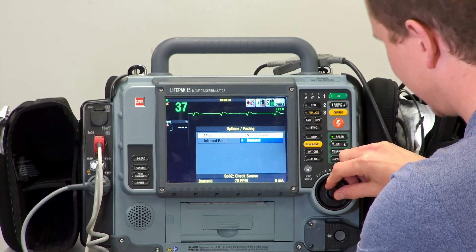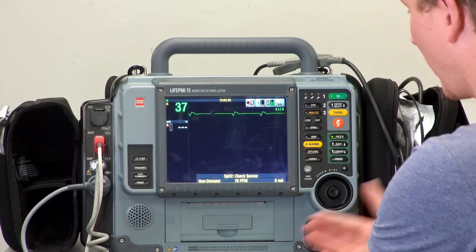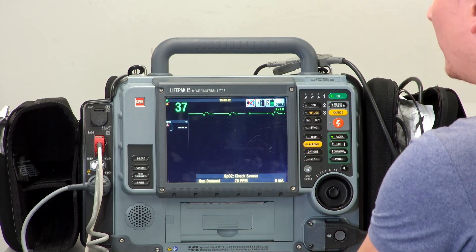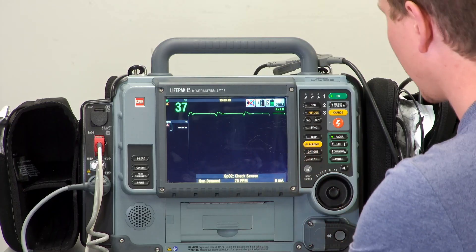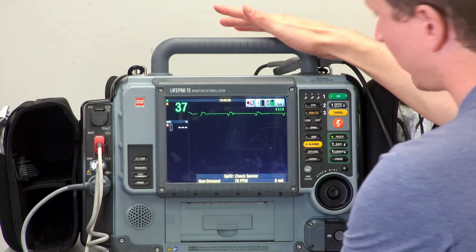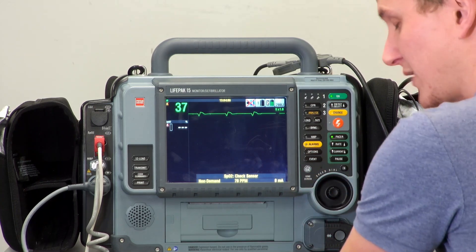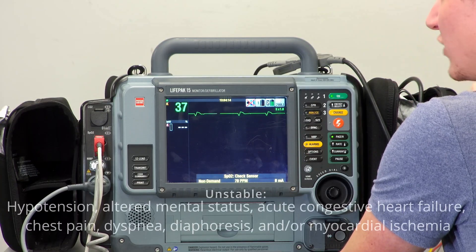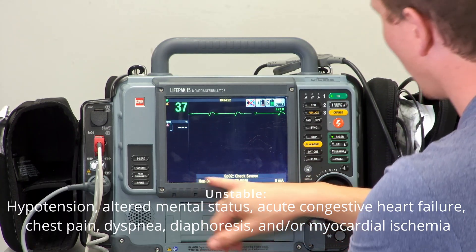Demand mode means that if we set the rate to 70 and the patient's intrinsic heart rate goes above 70, the machine will turn off. To change this, go to options, then pacing, and switch from demand to non-demand. In non-demand mode, the machine will continue to pace at 70 regardless of the patient's own heart rate. If you are in a moving vehicle, fixed-wing, or rotor-wing aircraft, non-demand is safer because artifacts or movement on the ECG will not impact the machine's ability to pace. We are wanting to pace someone unstable — hypotensive, decreased level of consciousness, chest pain, or signs of inadequate perfusion.